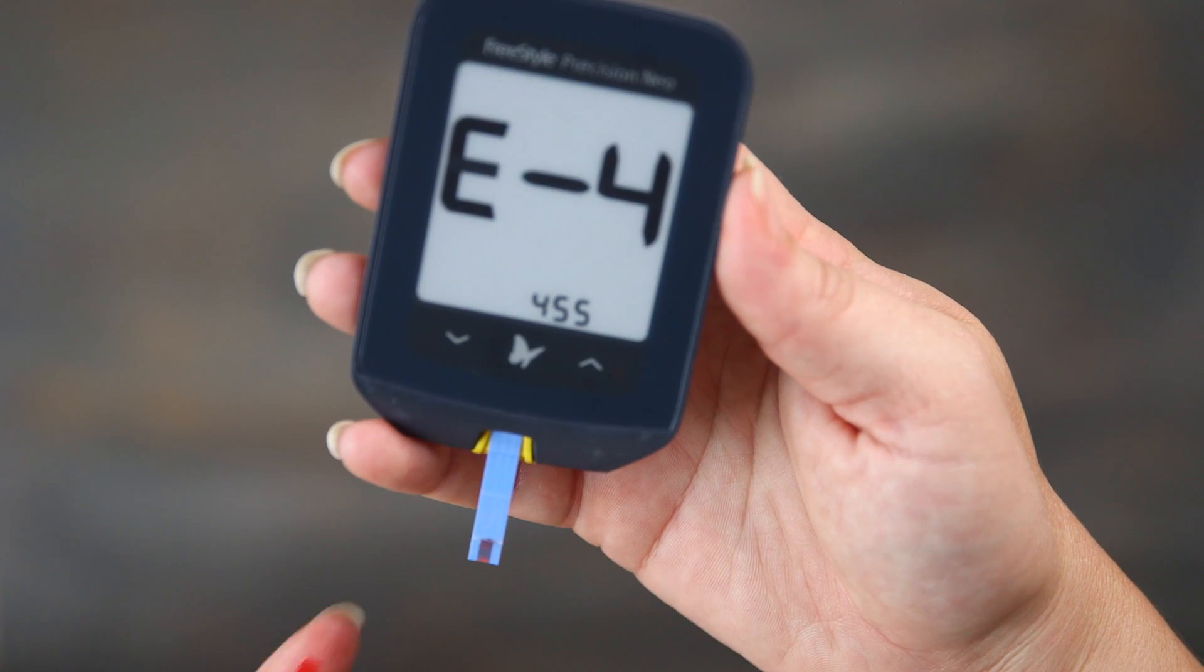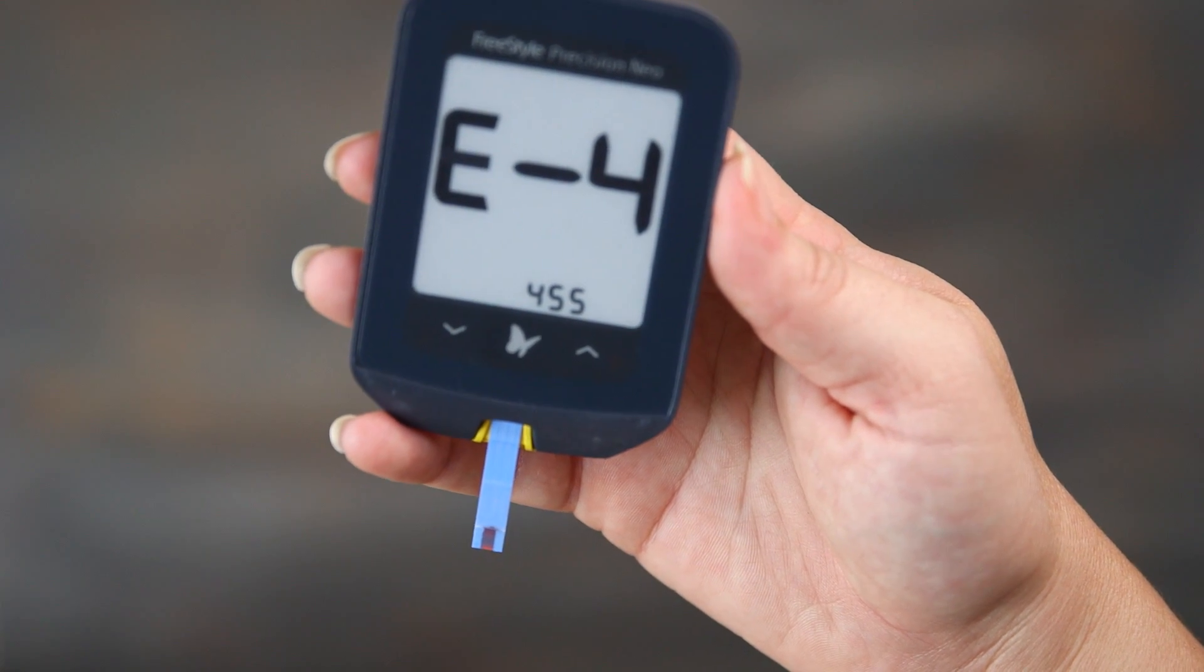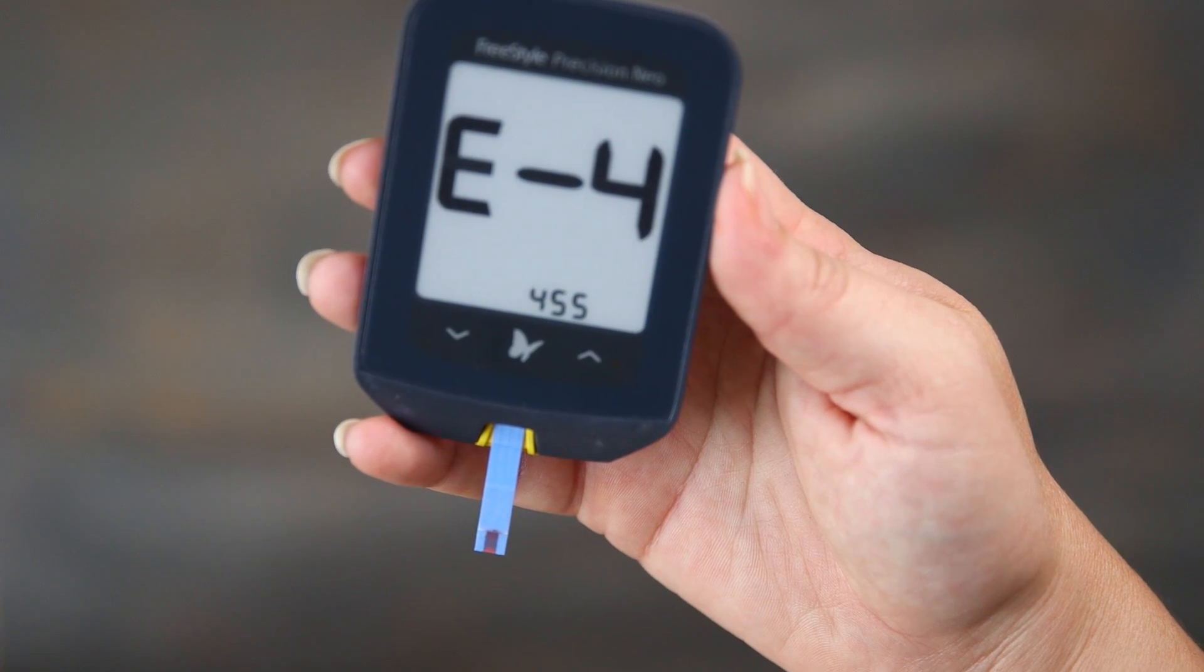If you get an error or you think something is wrong with your results, just wait a few minutes and test again. Check your instruction manual for troubleshooting errors.